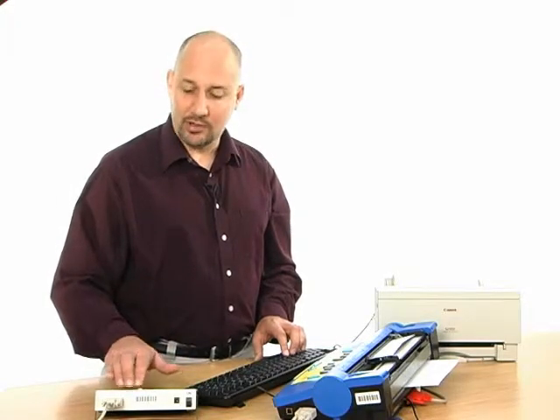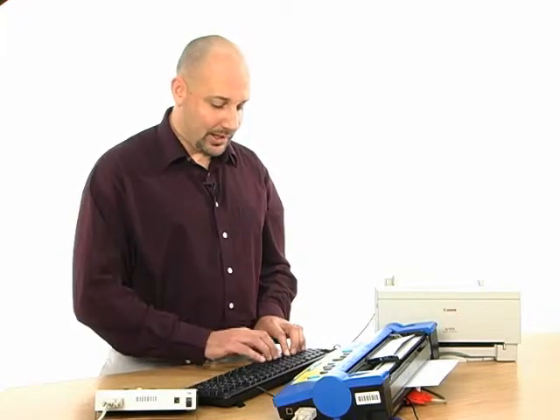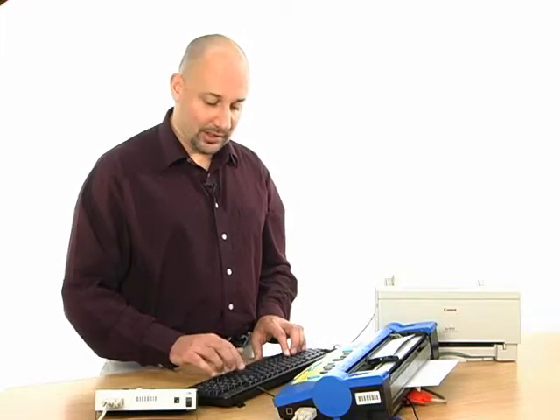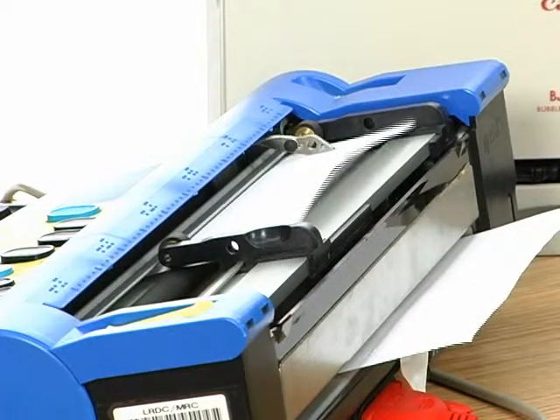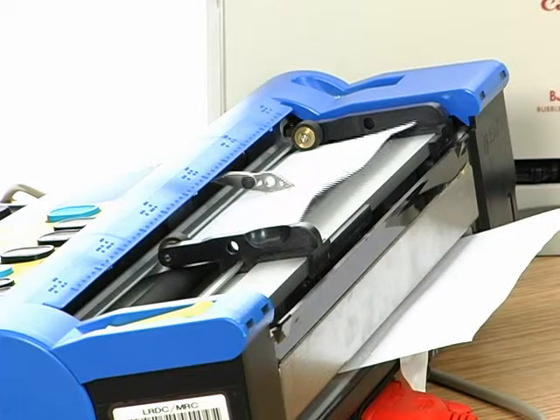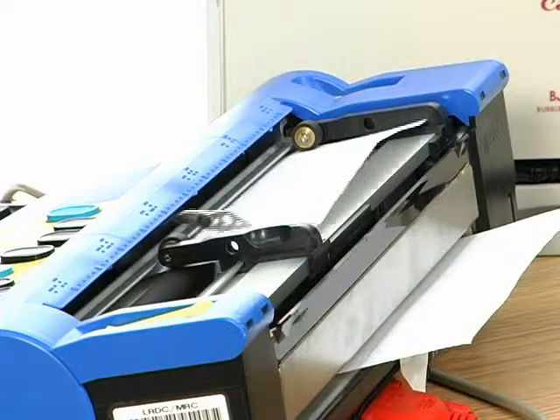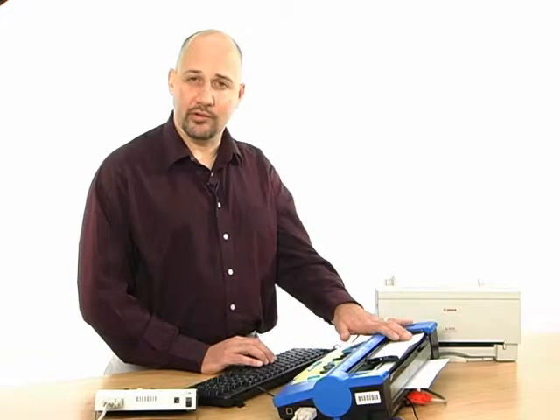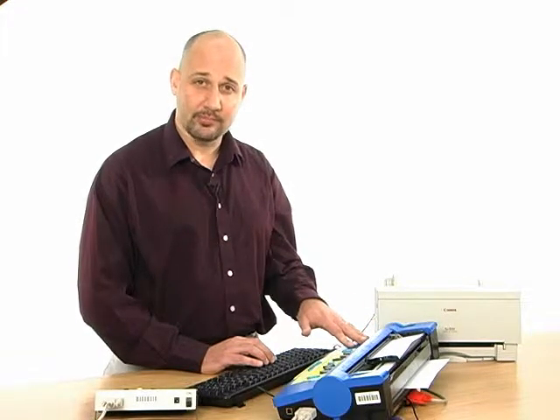The information typed comes up on the Mimic visual display so that the teacher can see what they're typing. And then when they're finished, they can hit the Enter key twice to force it into Braille. They've now produced a Braille message for the student using whatever level of Braille that student is using, whatever level of Braille the Mountbatten is set for.